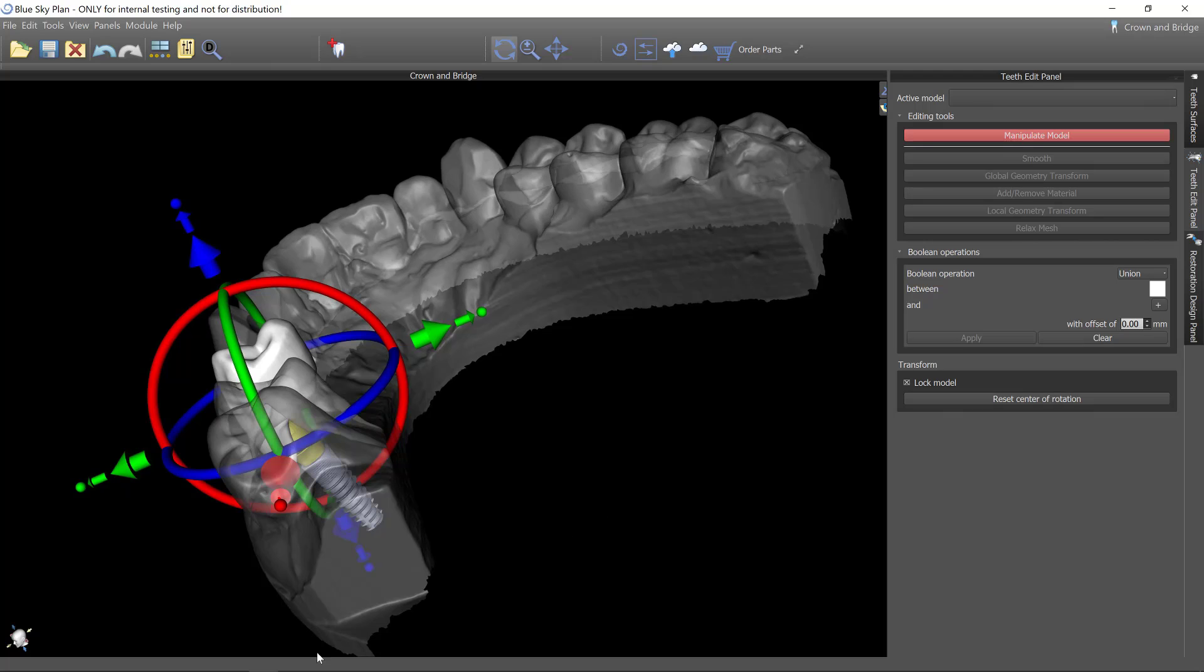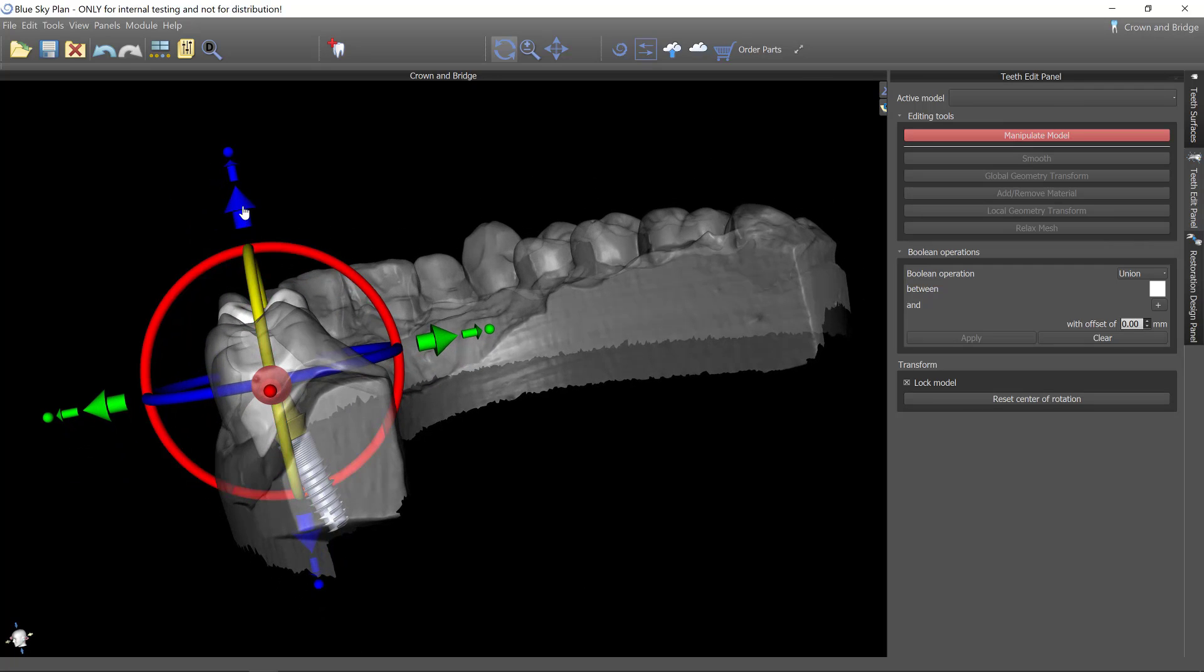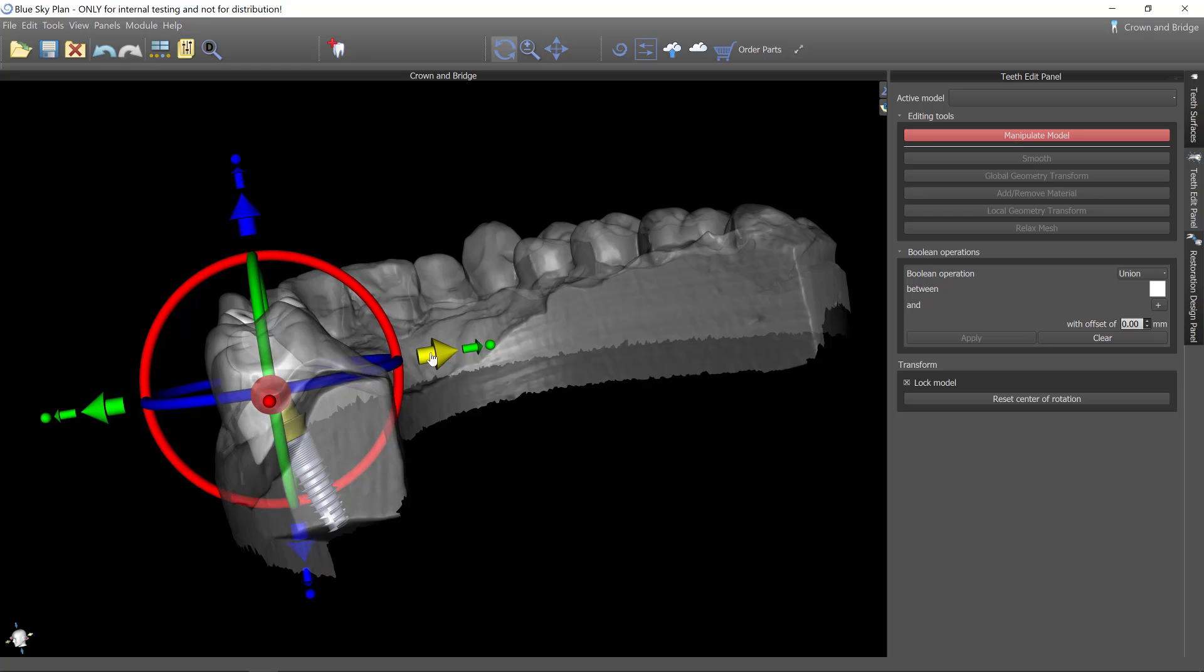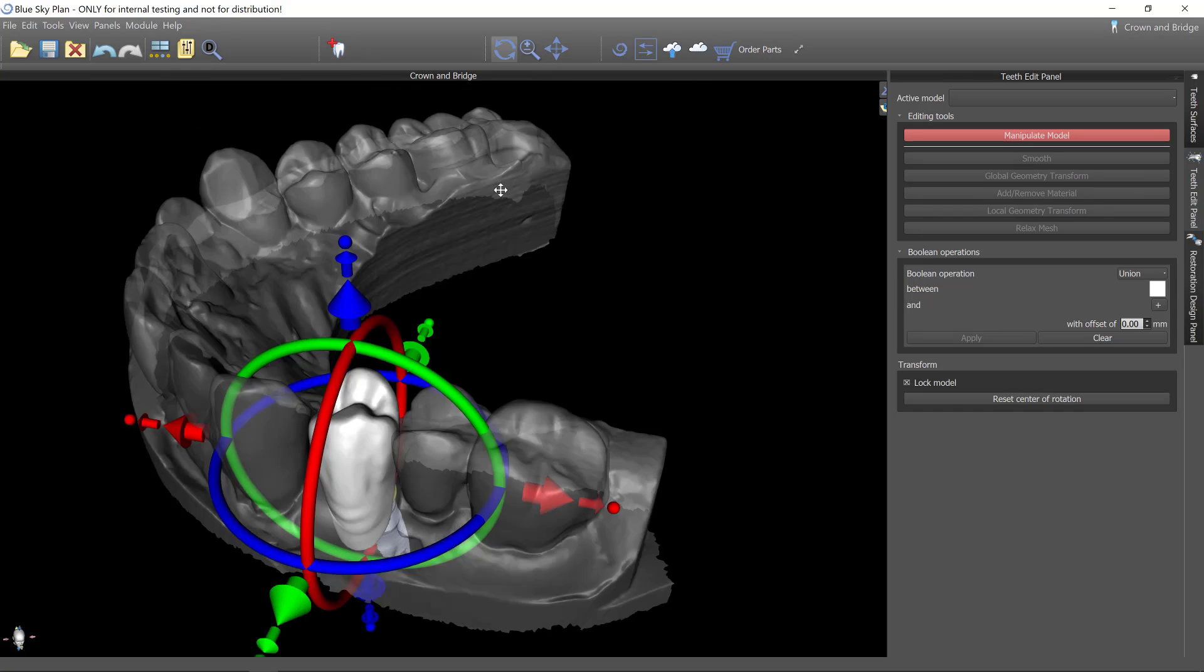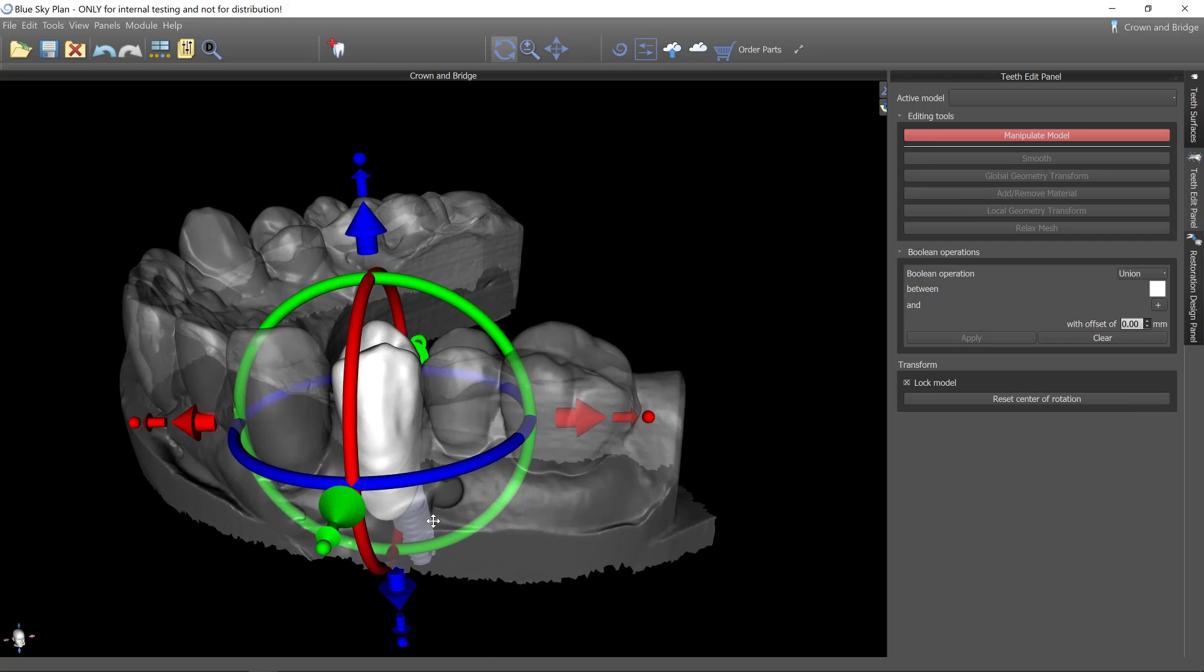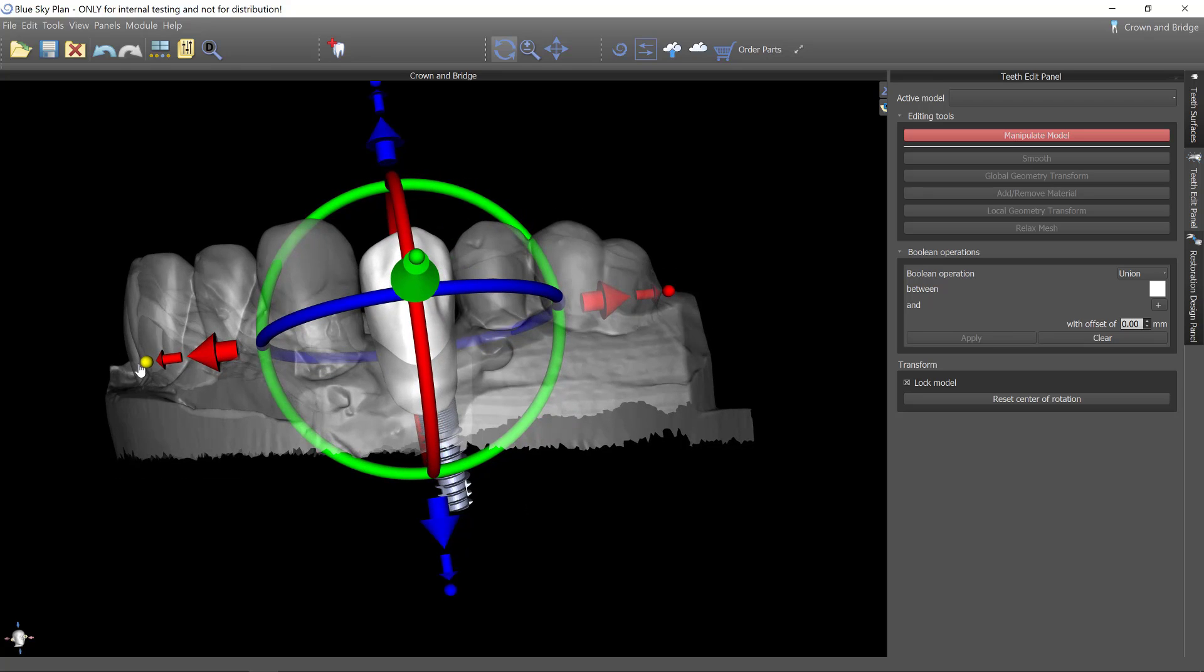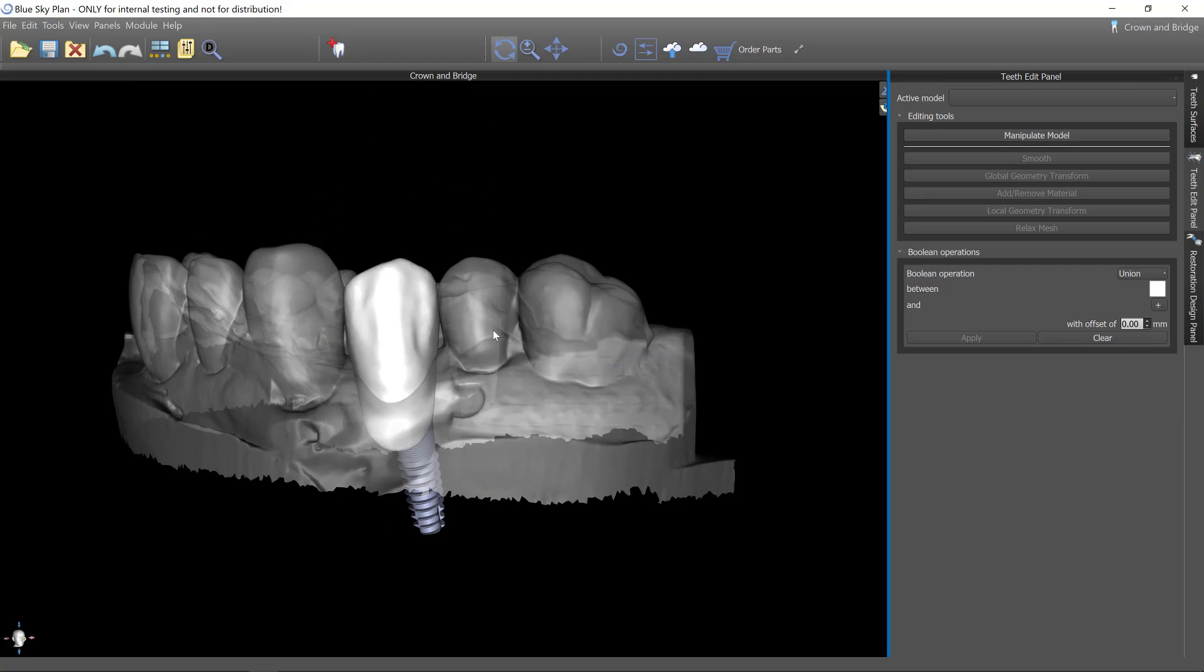And then finally I'll look from the distal and I can see that this still needs to come down further and perhaps be rotated slightly this way. So this is very much similar to what we do in placing a virtual tooth for an implant. And now you can see where that tooth is positioned. And it needs to be stretched just a little bit more to fill the edentulous space. So that looks good now.